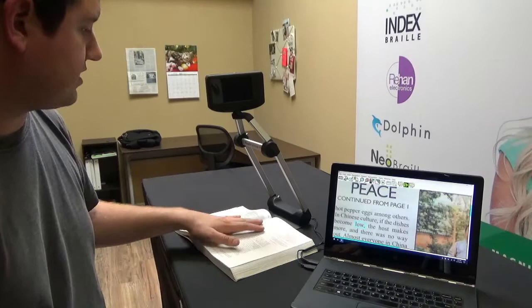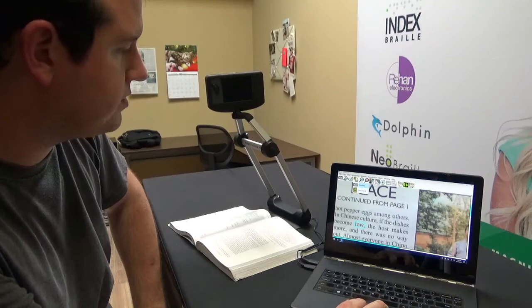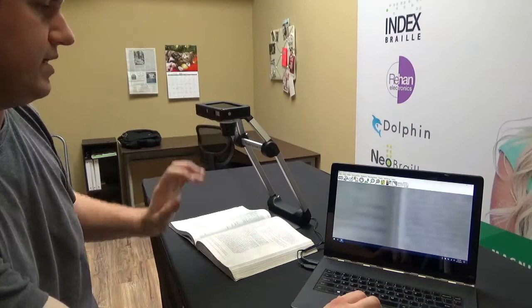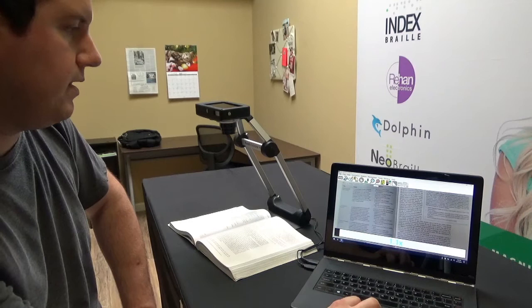Let's switch over and we'll capture something underneath the camera here. I just have a textbook that I have open. I'm going to turn my camera, well actually I'm going to switch back to my camera mode first. Switch back to my live camera. And then I'm going to turn my camera down.